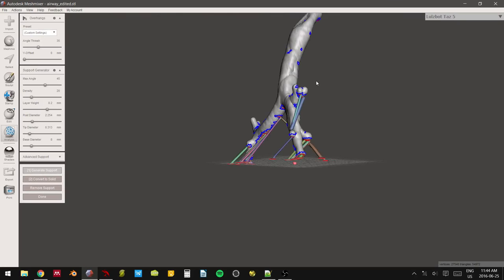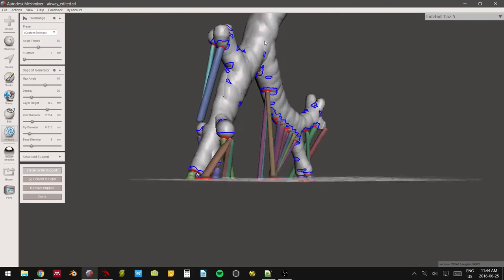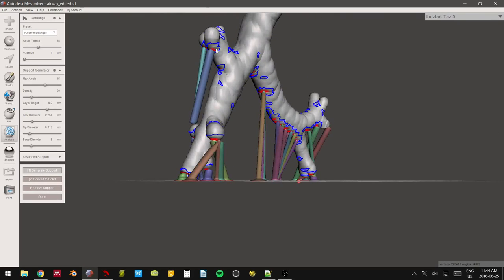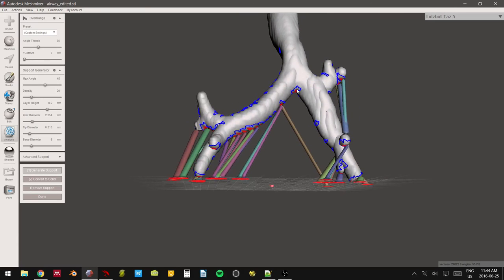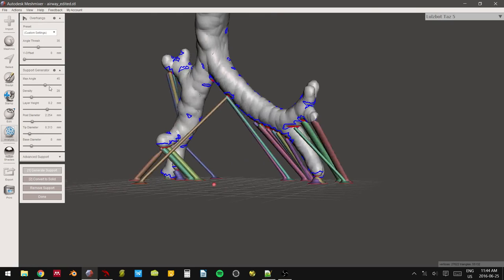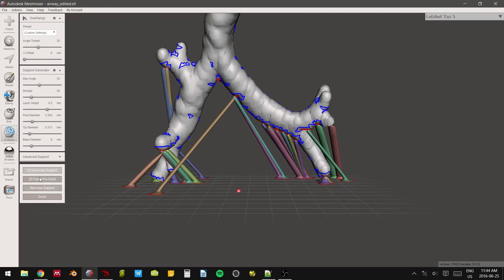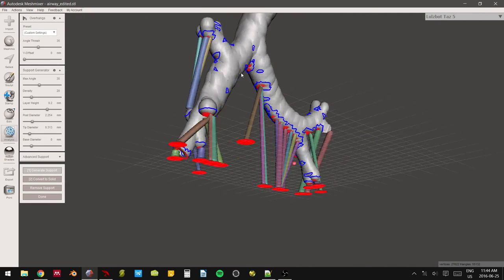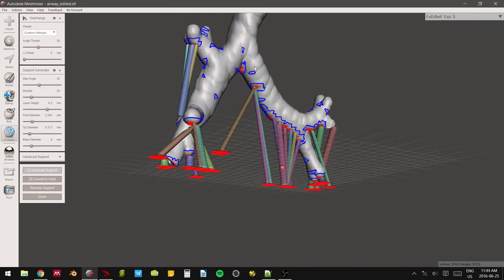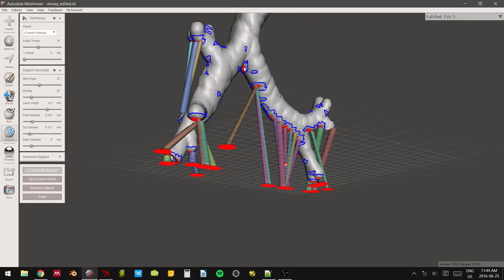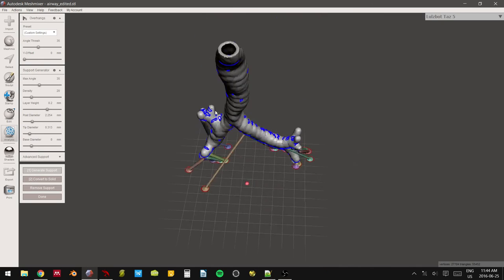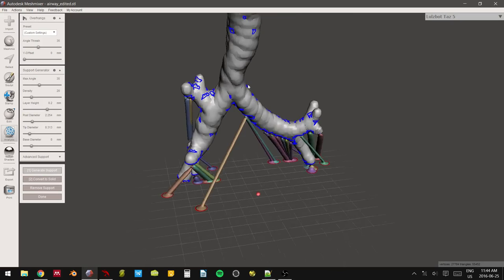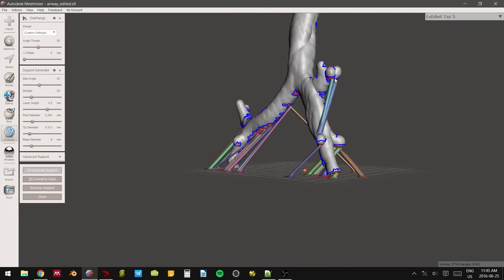And that does not sound great. But honestly, this is about par for the course when it comes to printing. Hope for the best. Lots of supports. You're going to want to overkill on this. Still worried about that bifurcation. This might not work. Anyway, I've gotten coverage pretty much everywhere. I would be comfortable enough to throw this onto the printer and then just see what happens. If it fails, note down any spots that are noticeably lacking in quality and then try and add supports there.